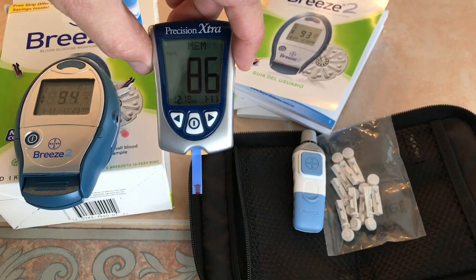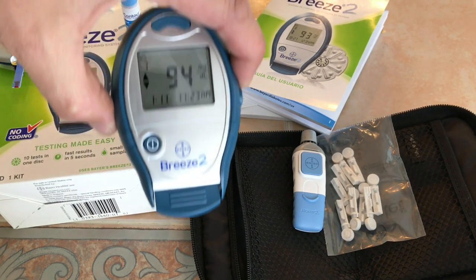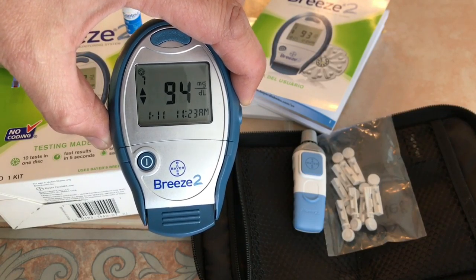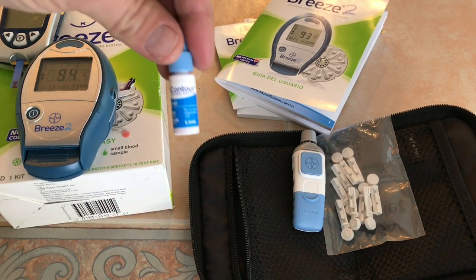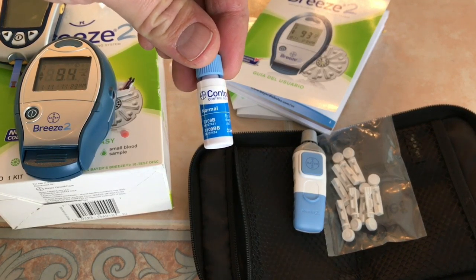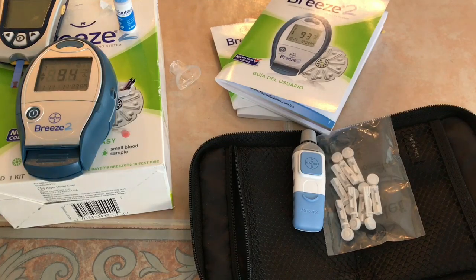And there is my actual blood glucose level. I found that there's a control solution that you're supposed to run as a test first — it dials the device in. But the control solution was expired, so I think that's the issue, because as you can see it's still about 10 off. I'm hoping to really dial this thing in because I like it. But test your blood, people.